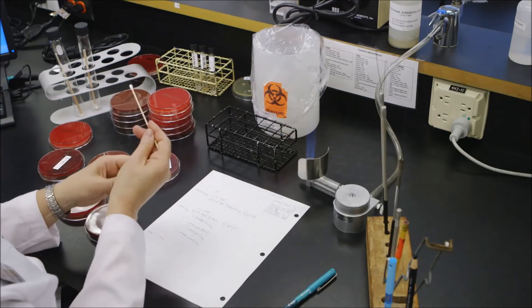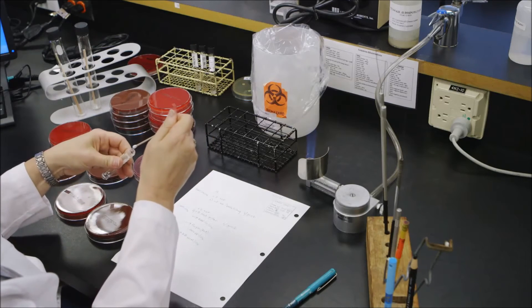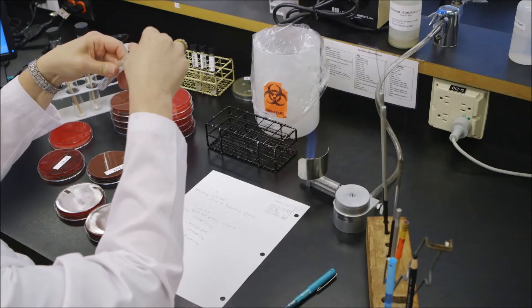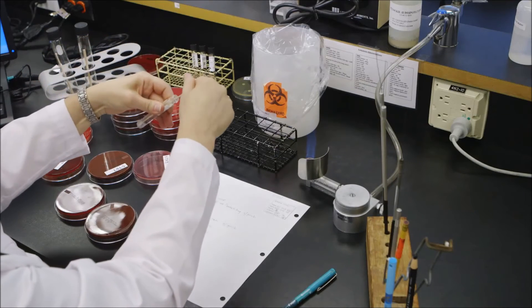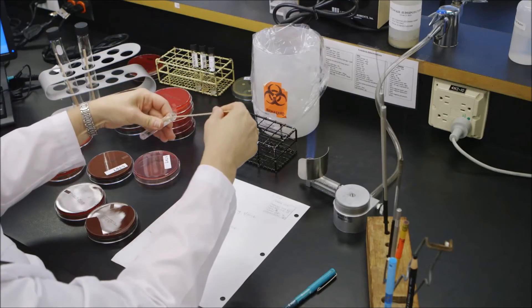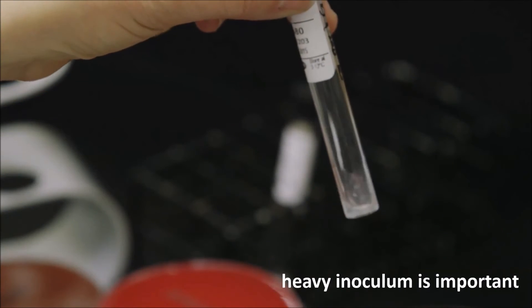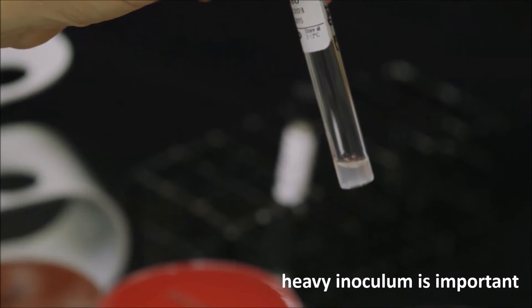The porphyrin has to be milky, a skim milk consistency. So that should be fine. And that goes into ambient.